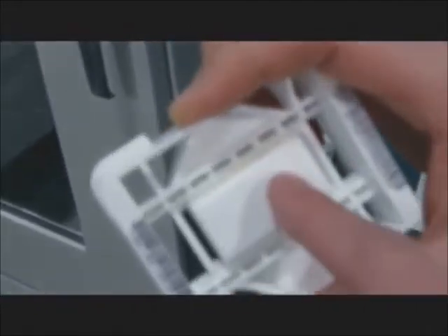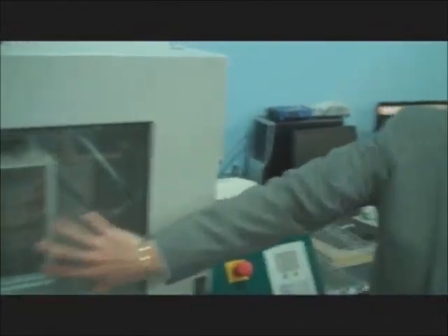So you've designed everything — what comes out of here? Well, it starts out as a Yttria-stabilized zirconia block. This is zirconia right here. From there, it's fully automated, so you have the barcodes. It goes into the Lava mill — it's a three-axis mill technology. It picks up the block, loads it into the machine, and mills from there.